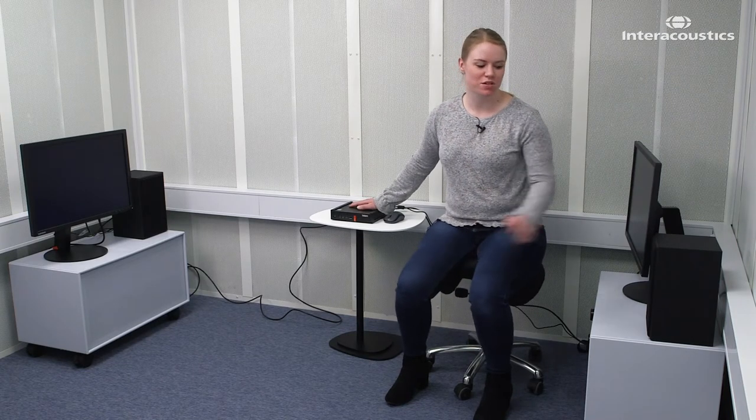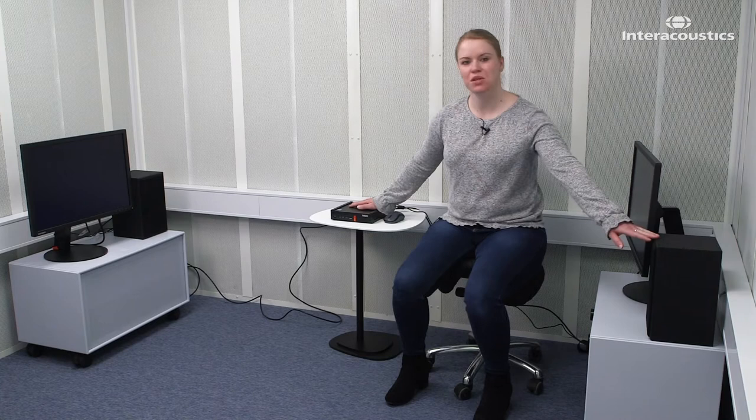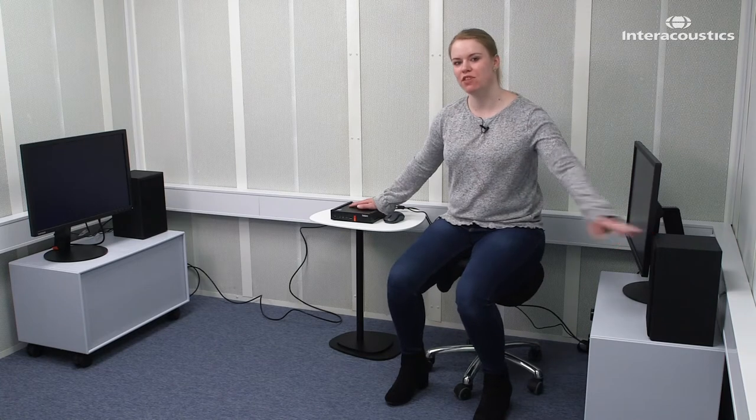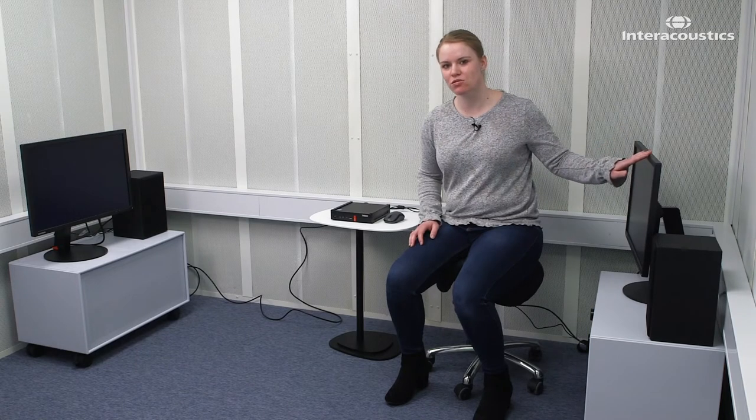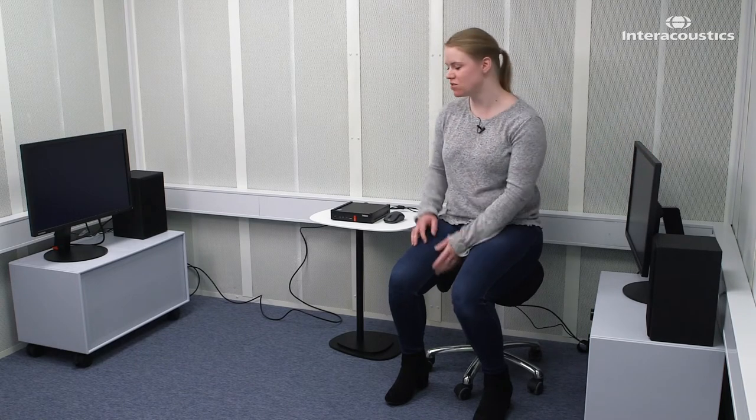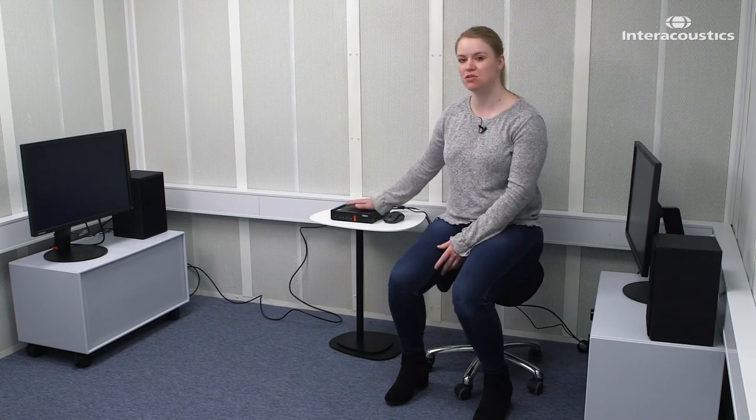I've also set up speakers because we have videos with sound on them. The speakers are connected directly to the screen, so that's important. You do not connect the speakers to the PC, but directly to the screen.